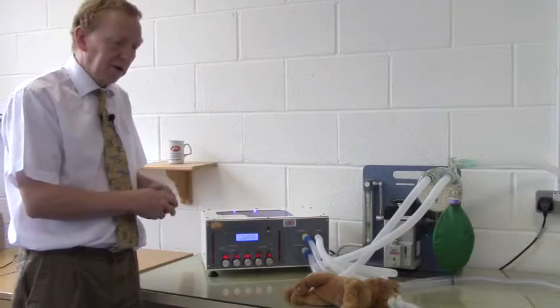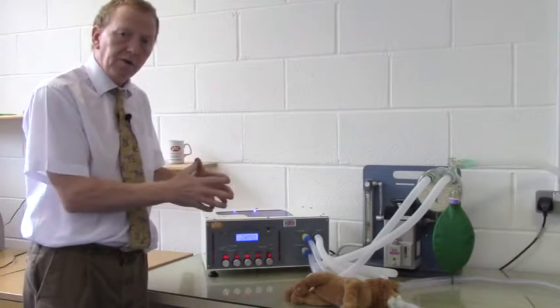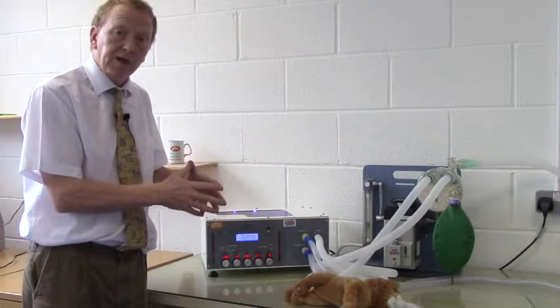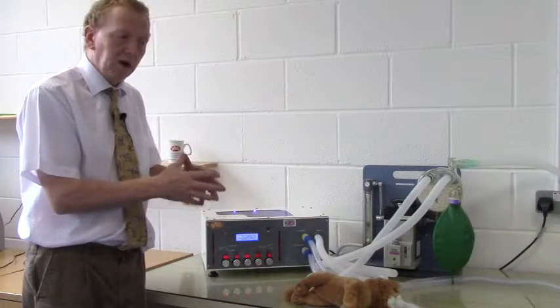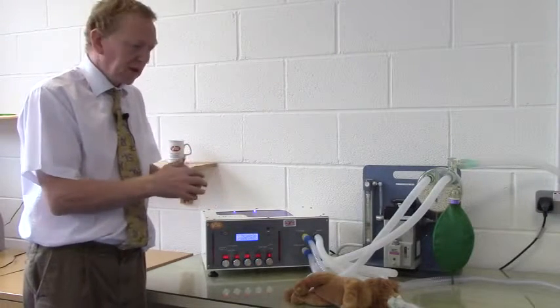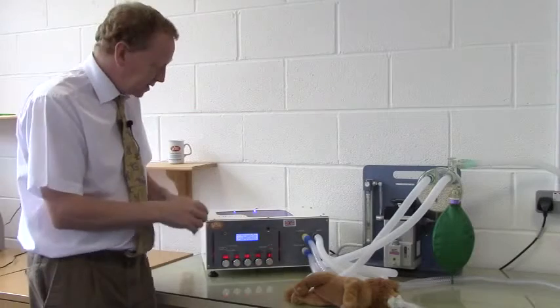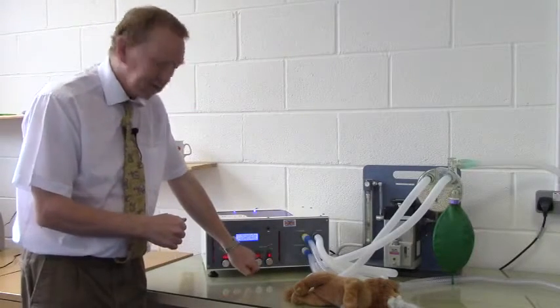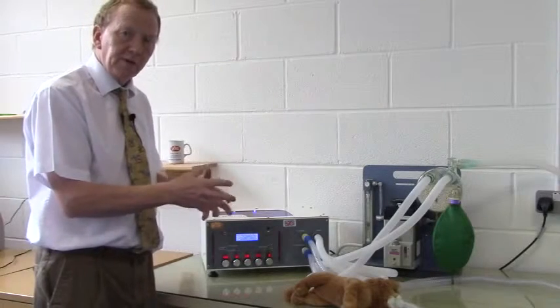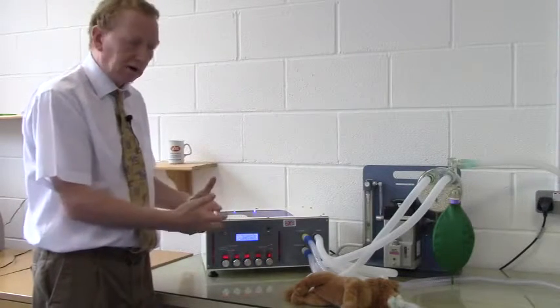In volume cycling mode, the ventilator wants to deliver the whole volume. It really has no concept of the compliance of the animal or of the back pressure or of it reaching a certain pressure. The only caveat to that is that our maximum working pressure is set at 25, and if for some reason the volume couldn't be delivered without rising above 25, an alarm will sound.